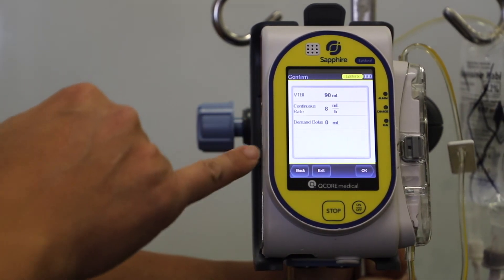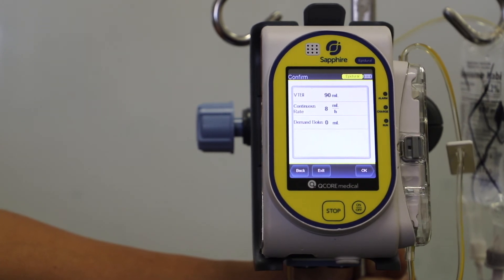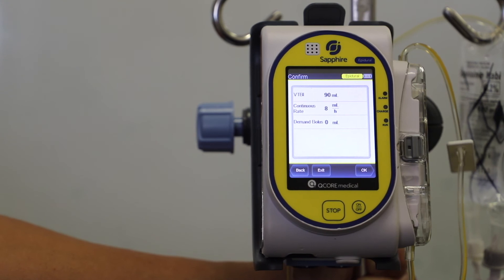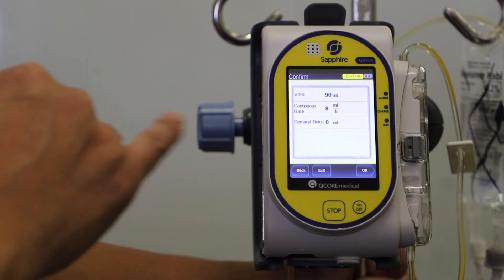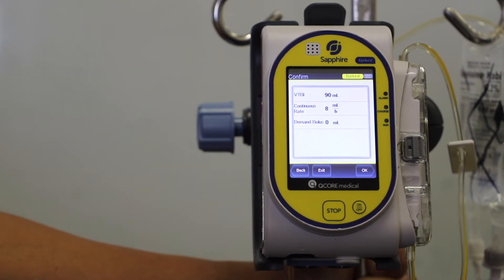We confirm with a second RN, the program details, the volume to be infused as 90 mils, the continuous rate as eight mils an hour, with a demand bolus of zero.